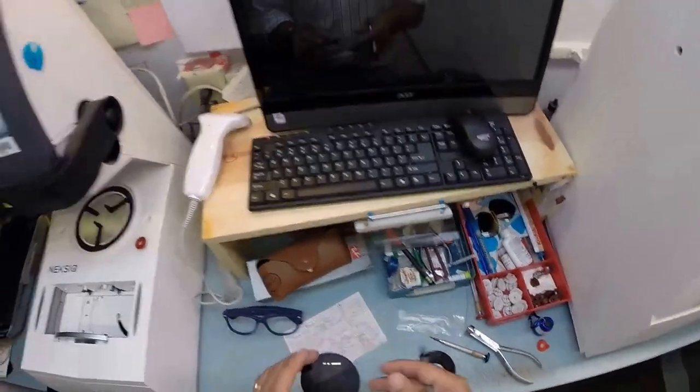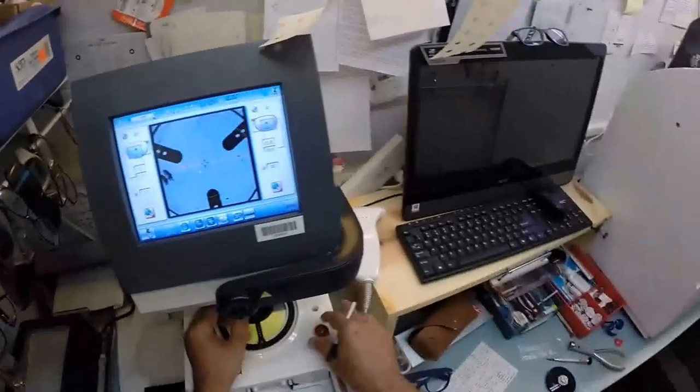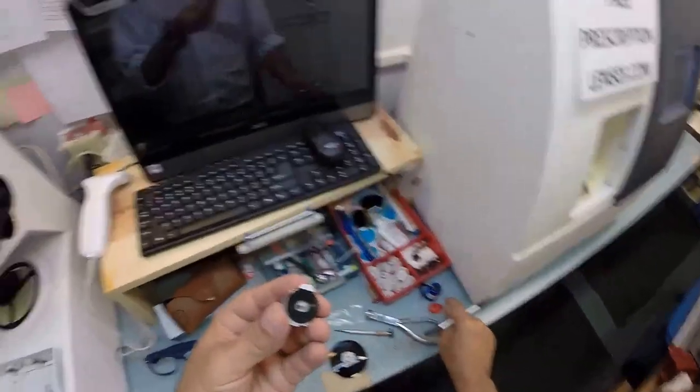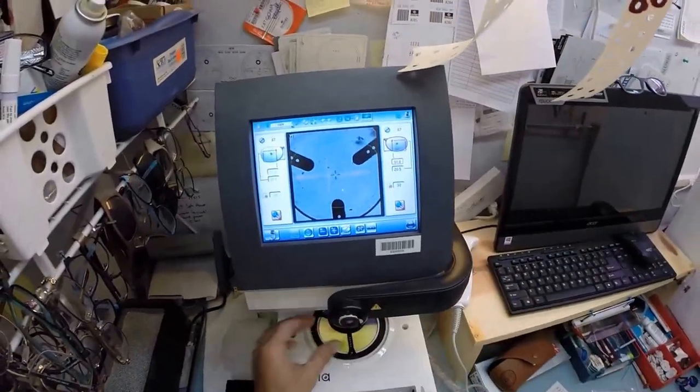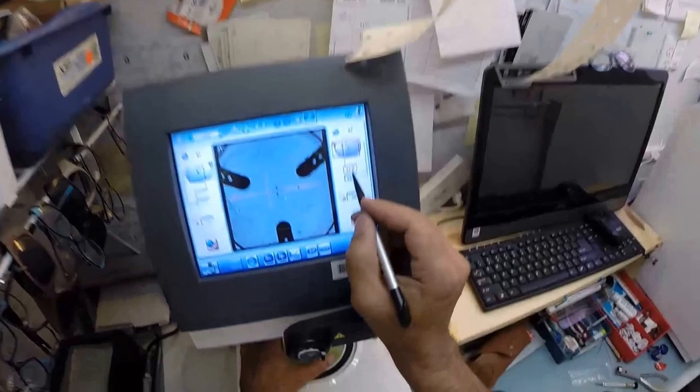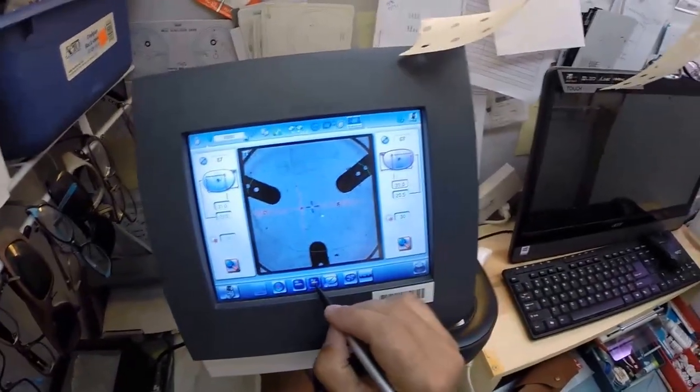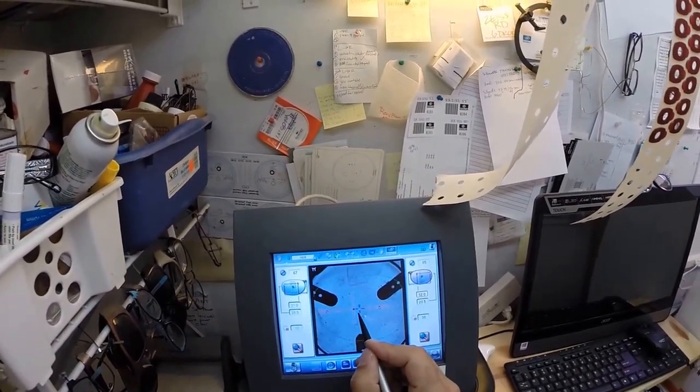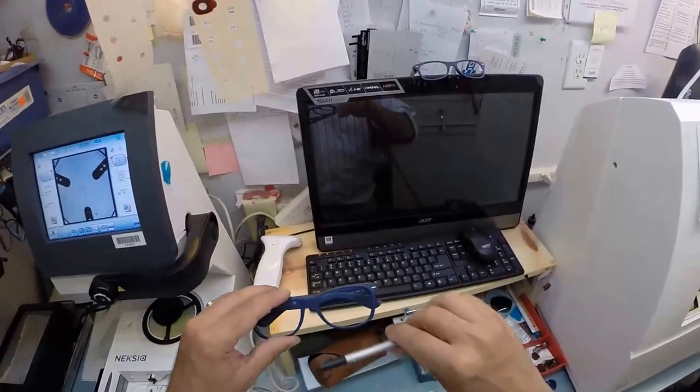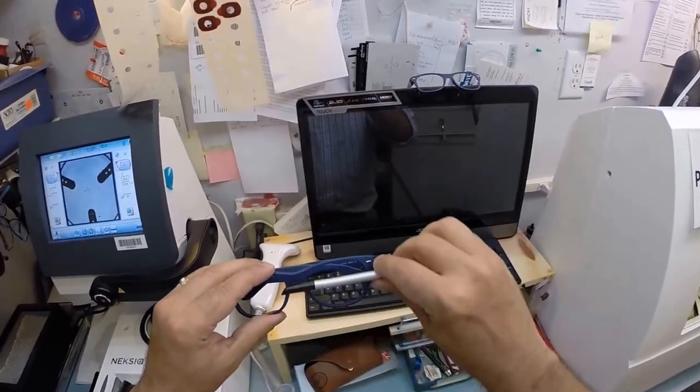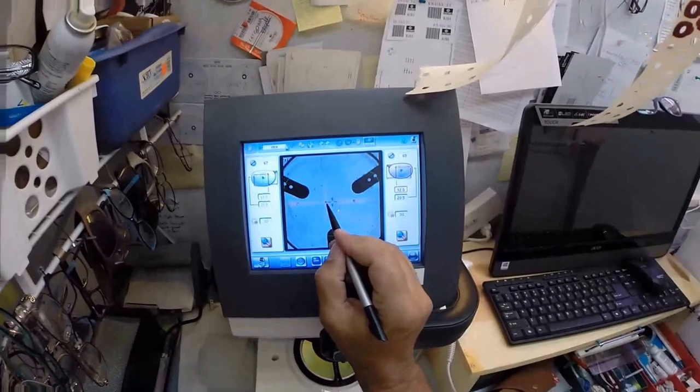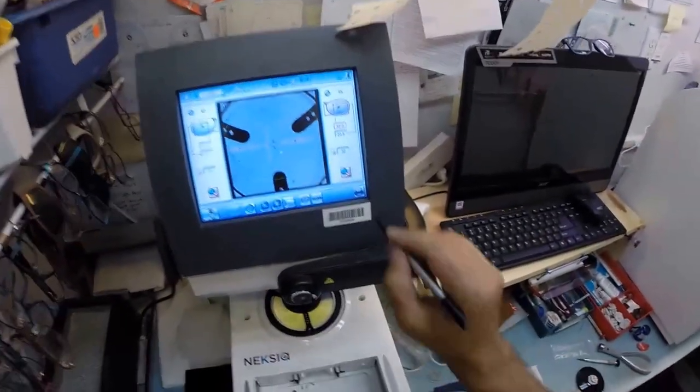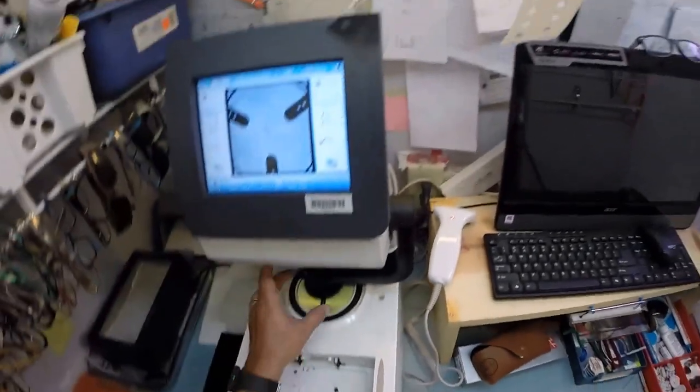A block is now applied to your right lens. We're going to do the same thing for the left lens. Pull the paper away to make this side sticky, put the magnet in its place, get your optical center lined up. Although your pupillary distance for your left eye is 32, it mirrored your right at 31. So I'm going to hit that button twice. Now we're at 32. Put that in the optical center. That blue cross is the geometric center of the frame. If you were to measure vertically and horizontally, that blue cross would be dead center where it's at. Your eye is just inset of that. We're going to hit the button and place the block onto the left lens.